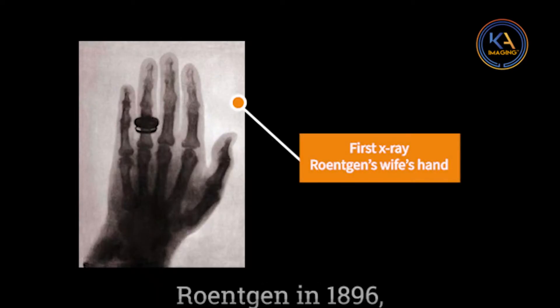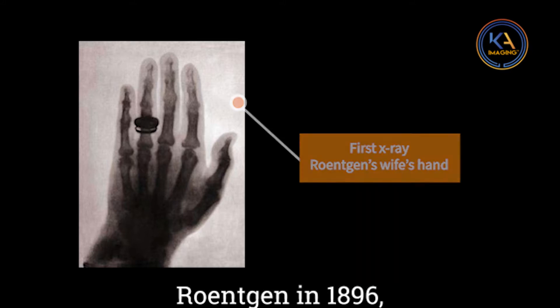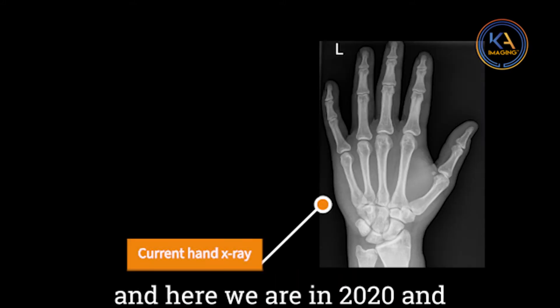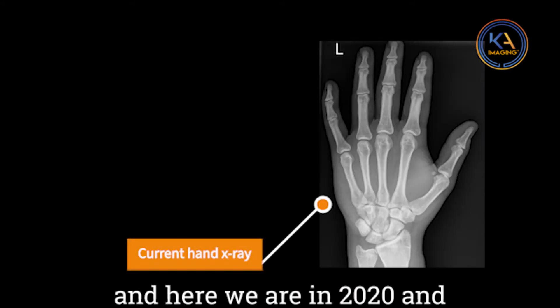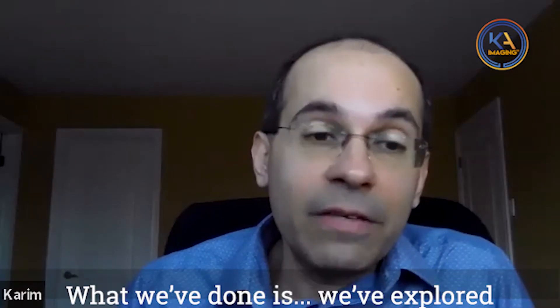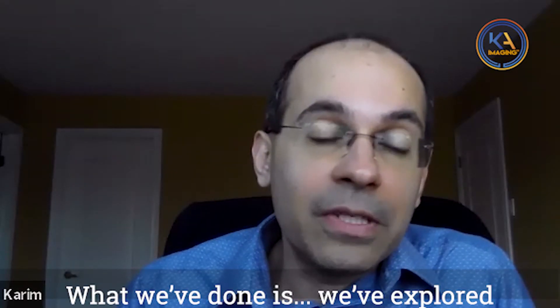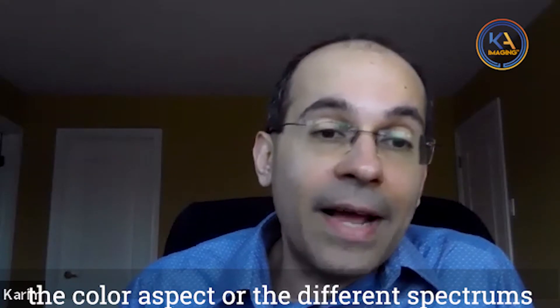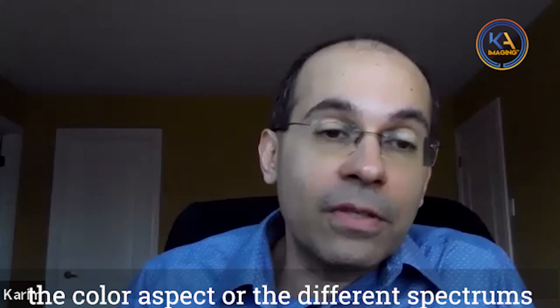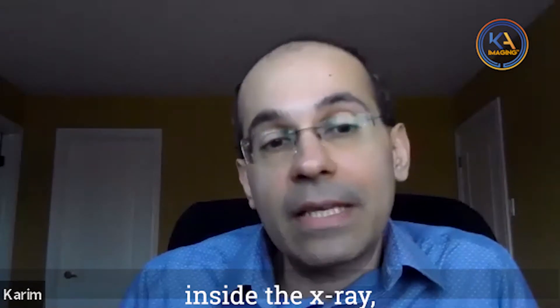Here we are in 2020 and pretty much it's still black and white. What we've done is explore the color aspect — the different spectrums, the different energies that are already inside the x-ray — and we're starting to make use of those.